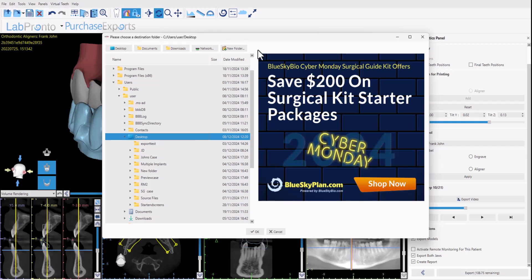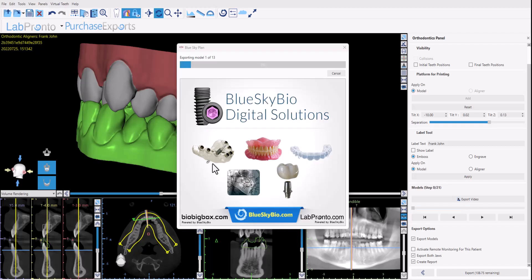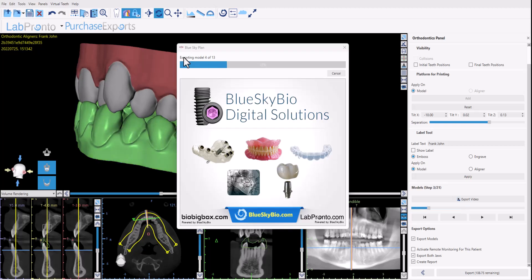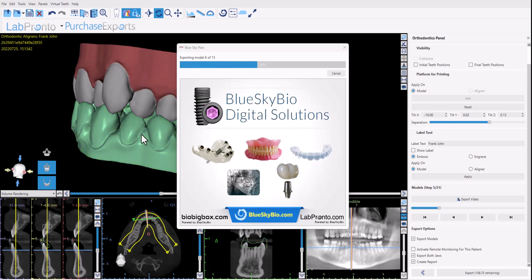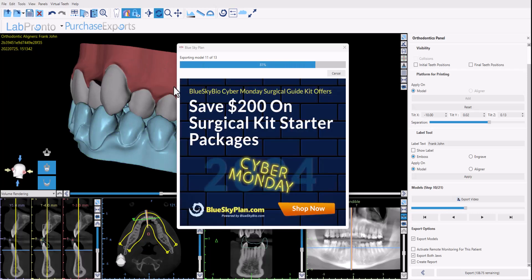I'll use the option here for a new folder and I will name this folder demo export and click okay. The software is now exporting the models for both jaws. We could see it's moving through the models and exporting.